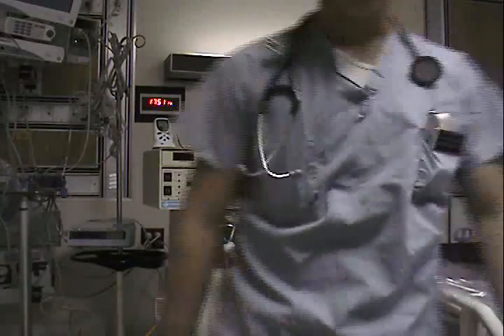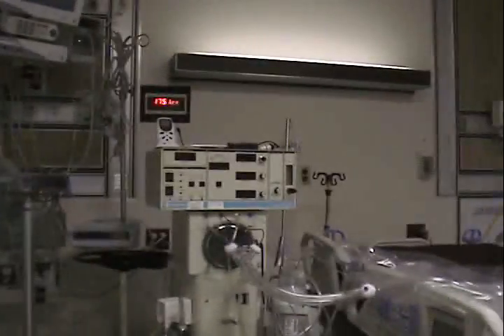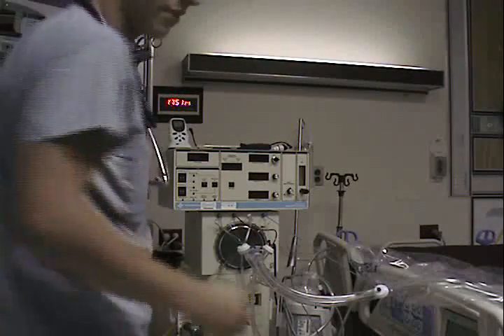First of all, you lay your circuit out like so on the bed, because you don't want your mean airway pressure to be influenced by bends in this circuit. So you need to be relatively low.